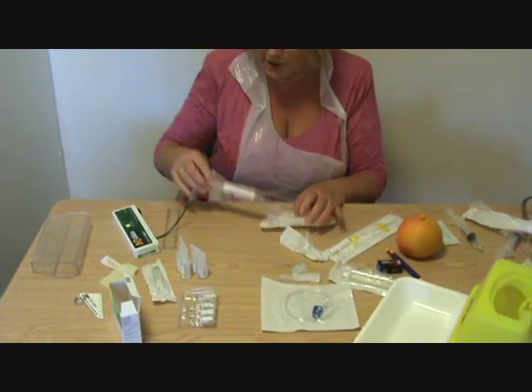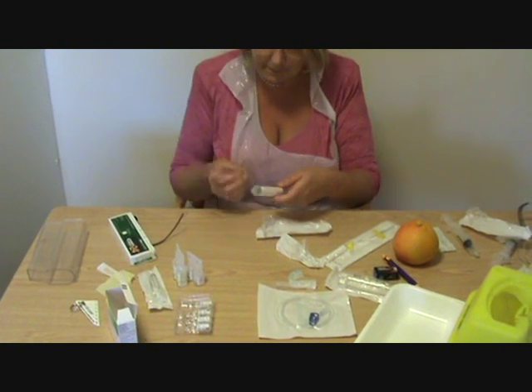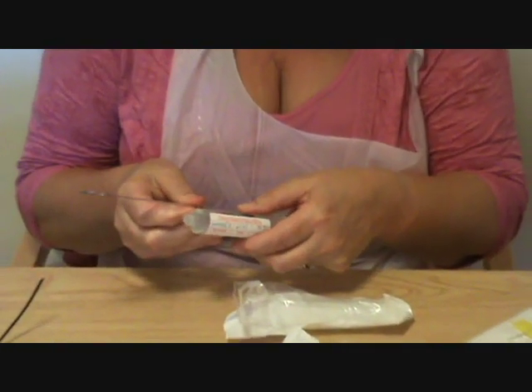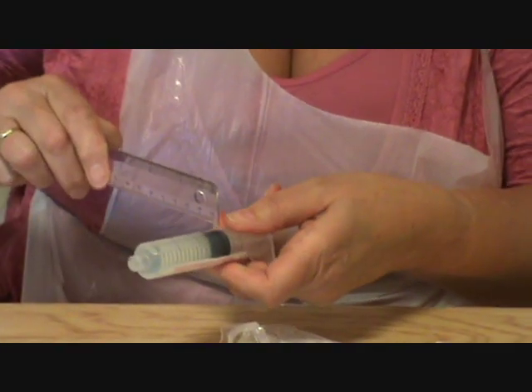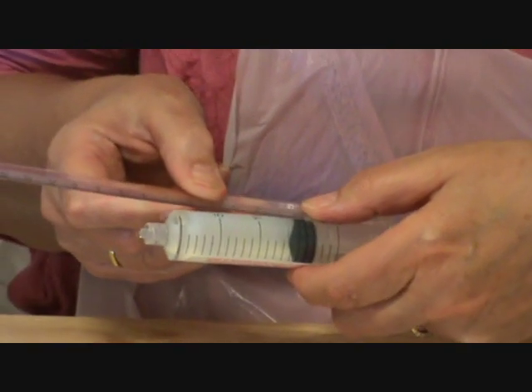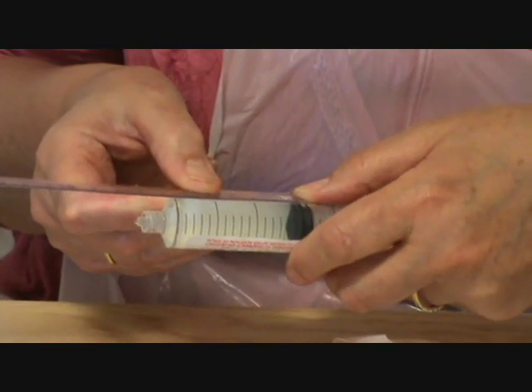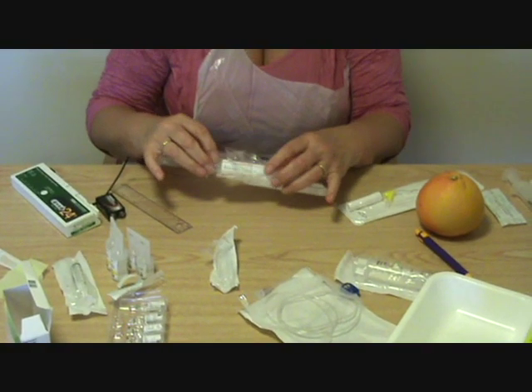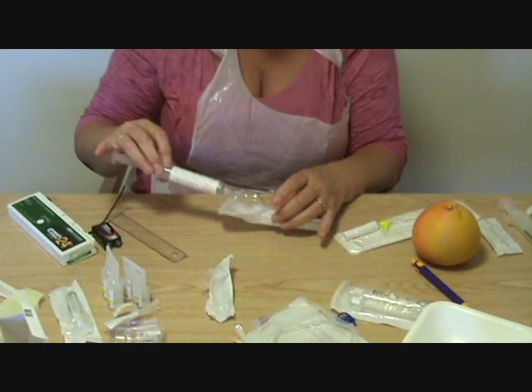Now I'm going to measure how much is in here. I'm measuring from the dark part of this barrel — from there to the first line — and that's 56mm. I've measured this as you've seen, and I've put the label on there. It's resting in there and I'm just going to get the extension lead out.